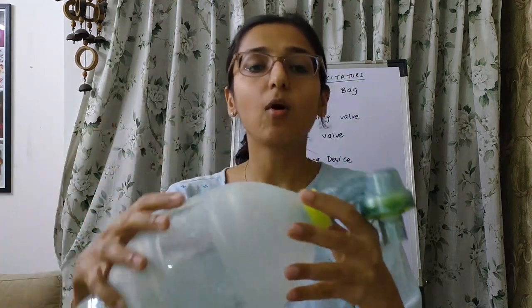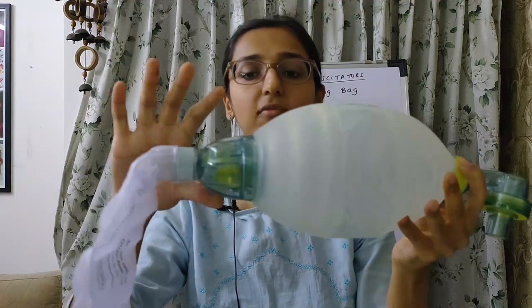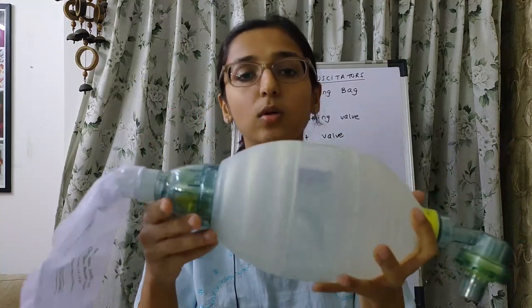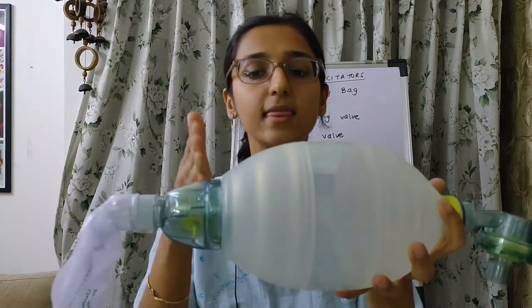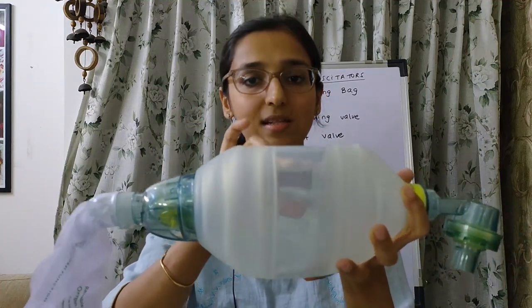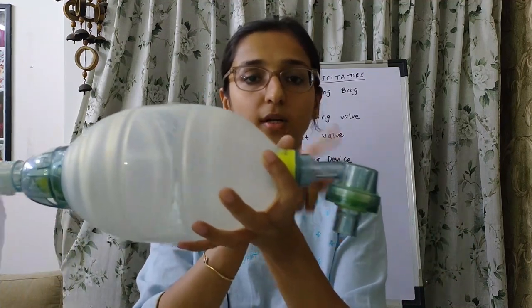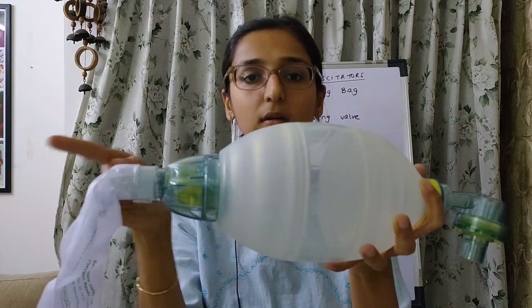There is another valve here that will also be closed during inspiration. So during inspiration there is only one-way flow of gas, that is towards the patient — there is no retrograde flow of gas.